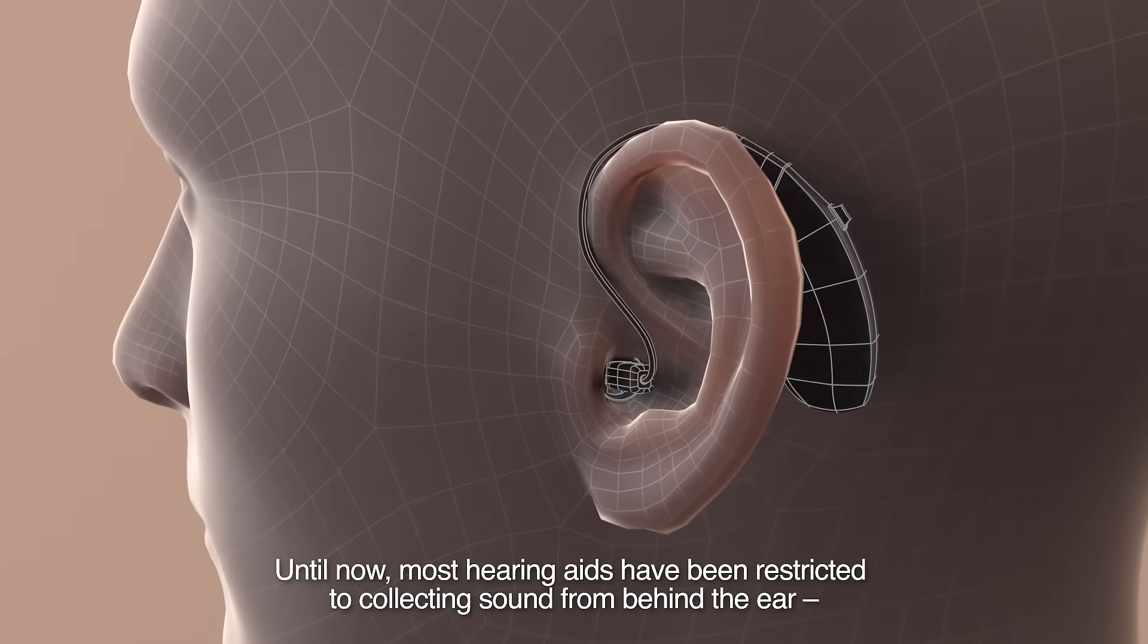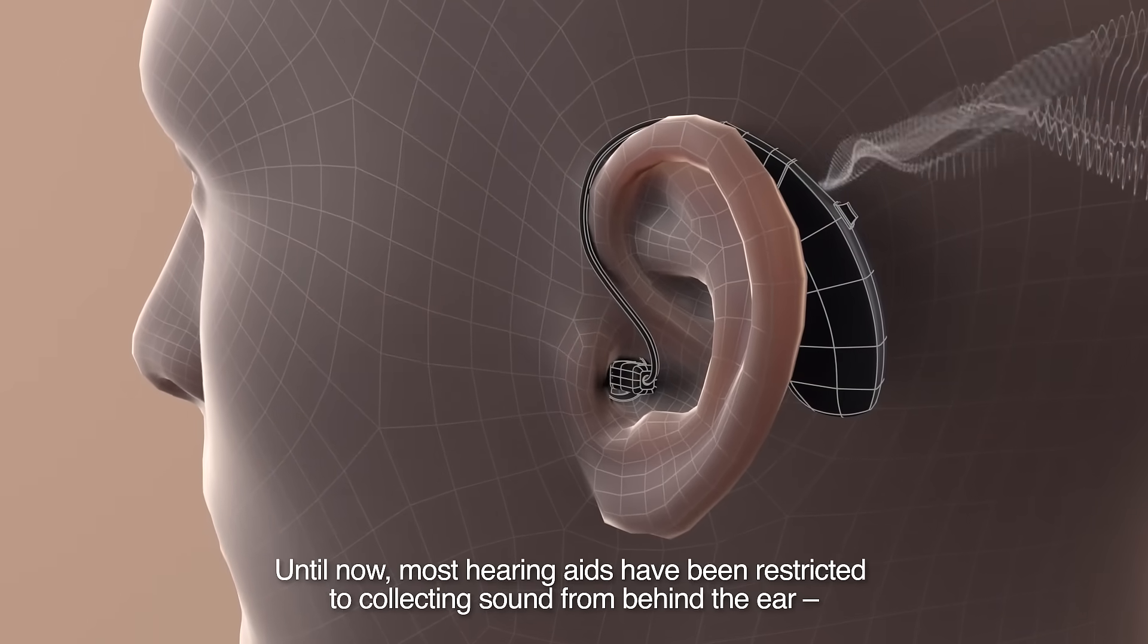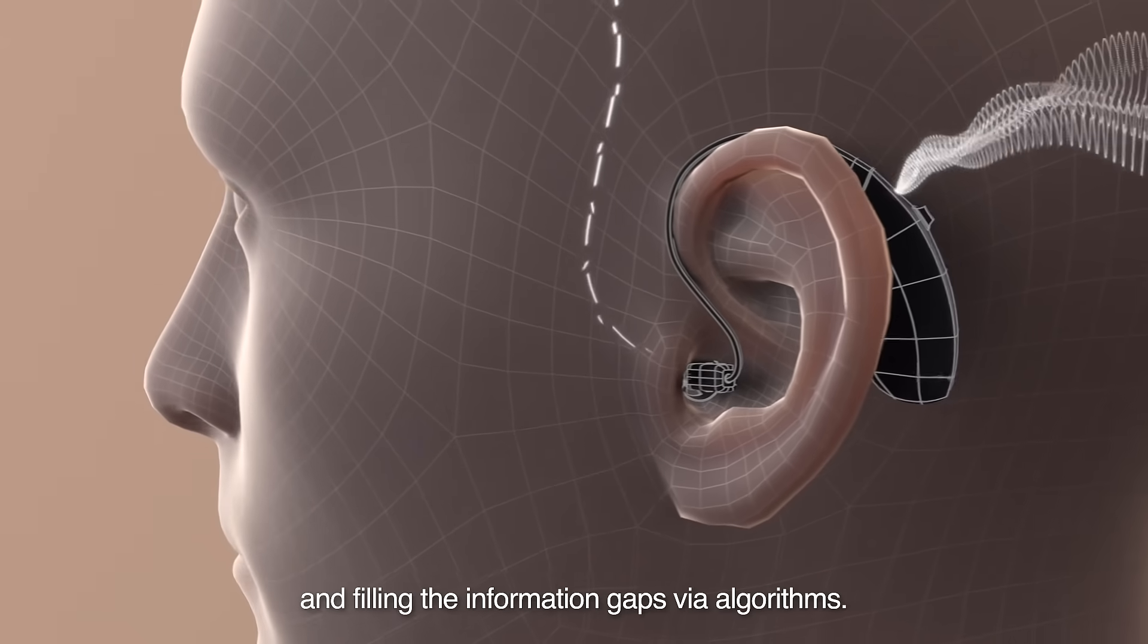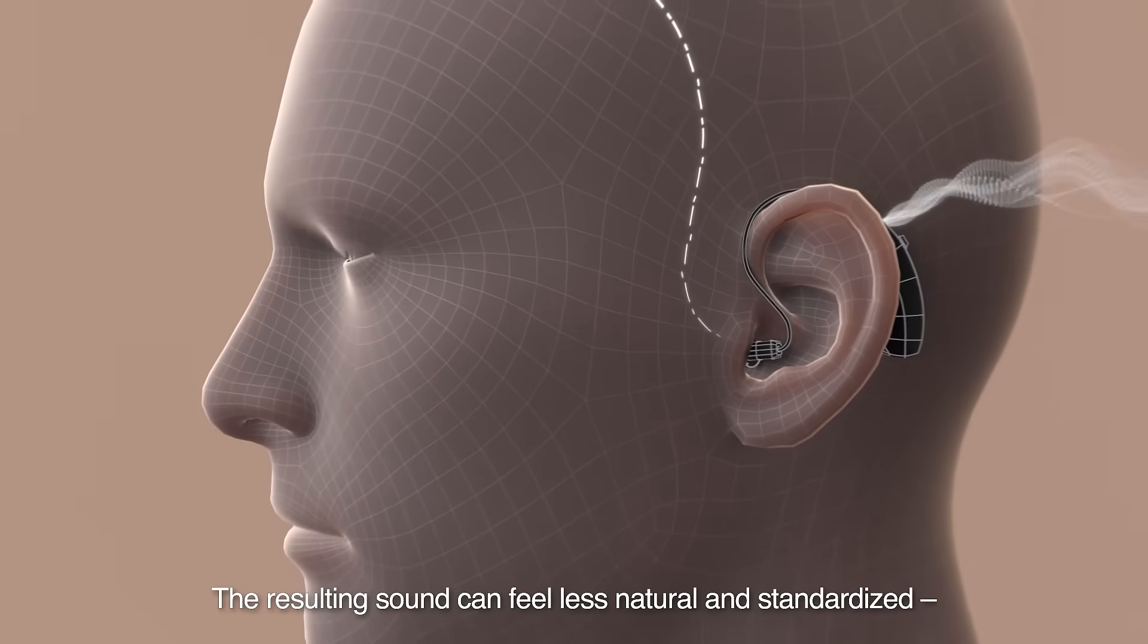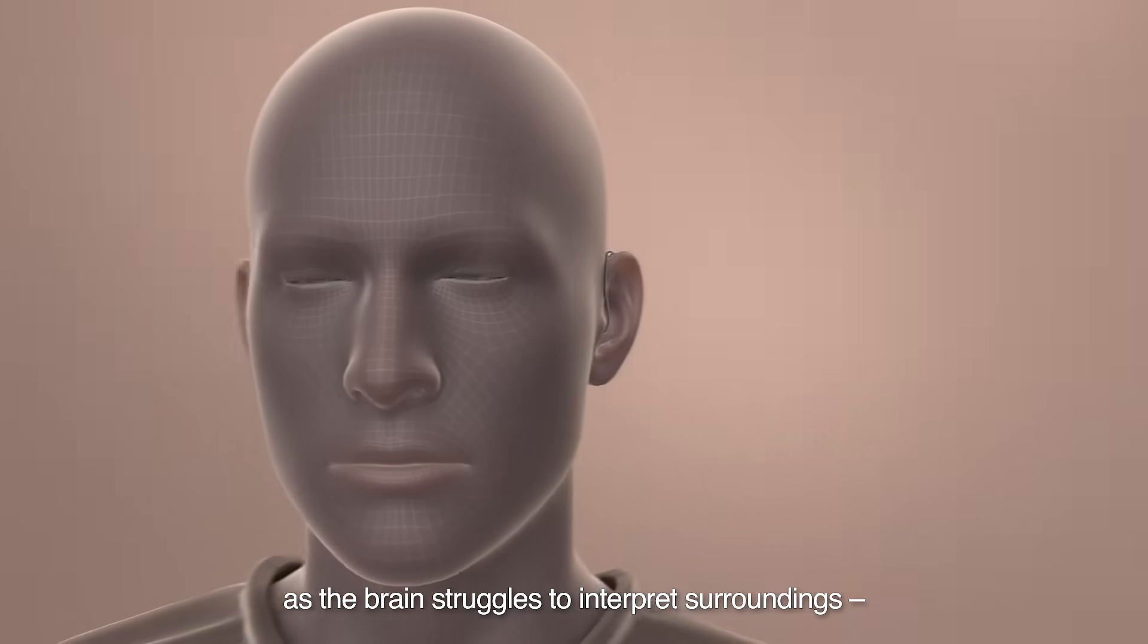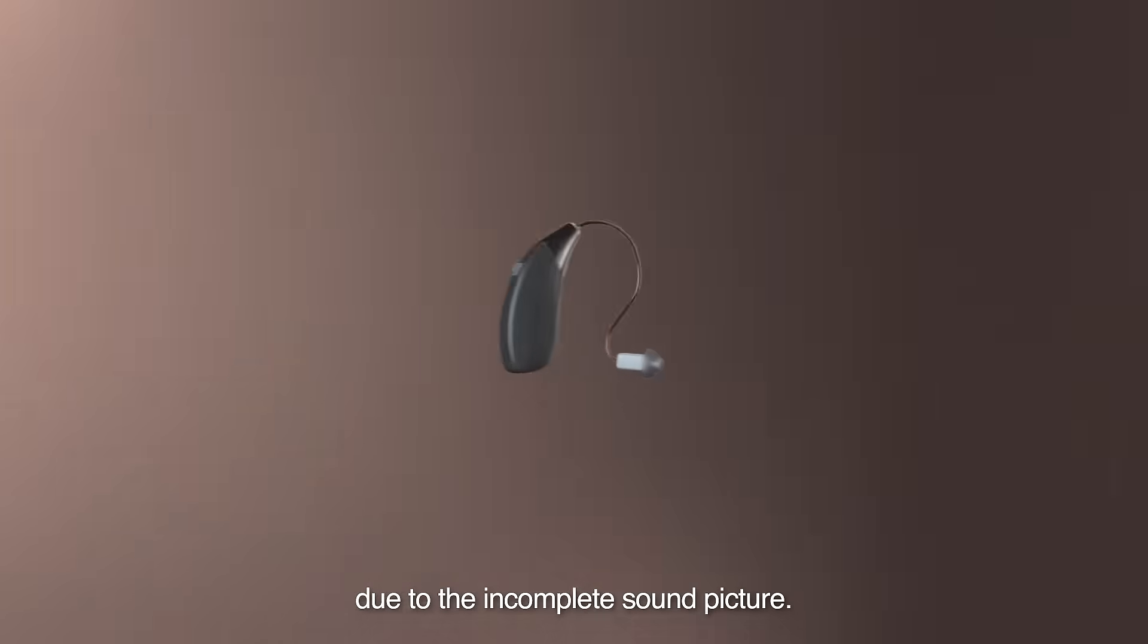Until now, most hearing aids have been restricted to collecting sound from behind the ear and filling the information gaps via algorithms. The resulting sound can feel less natural and standardized as the brain struggles to interpret surroundings due to the incomplete sound picture.